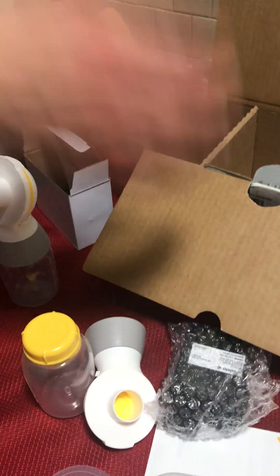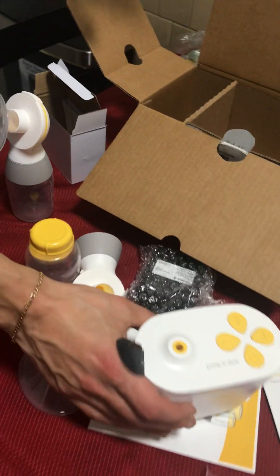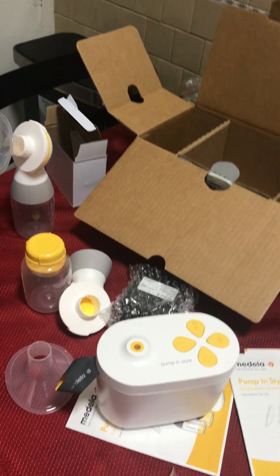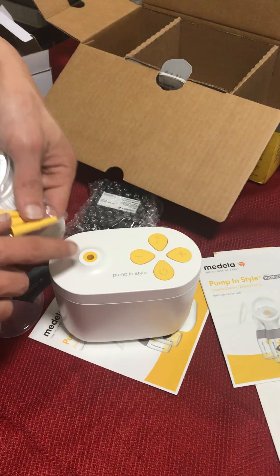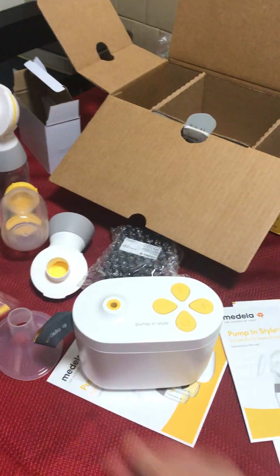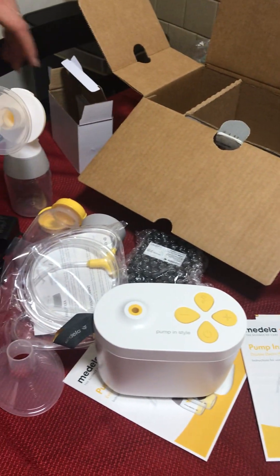You need to — they're dirty. Oh yeah, read the instructions. I think it's because of the wrapper or whatever. So this is where this goes in here? Yeah, then connect it to that. Alright, okay. We're excited.